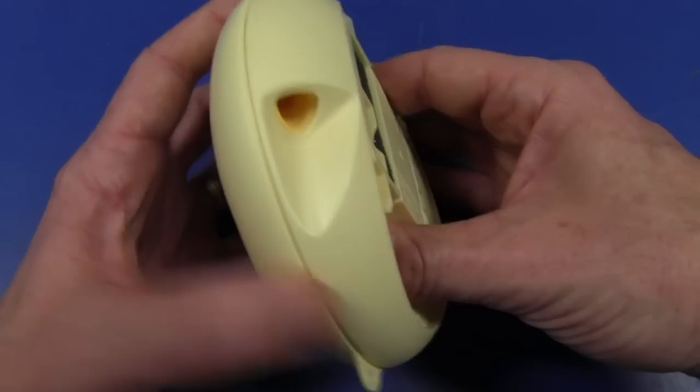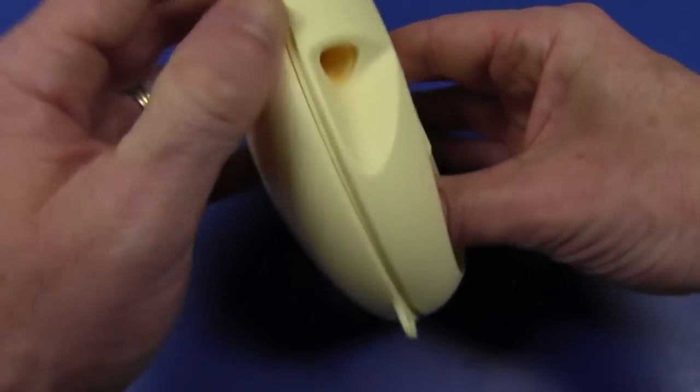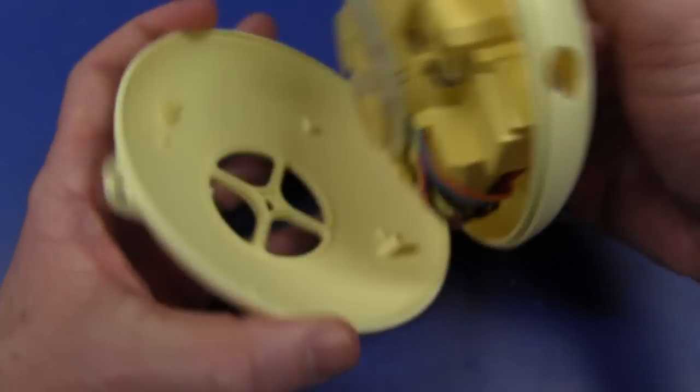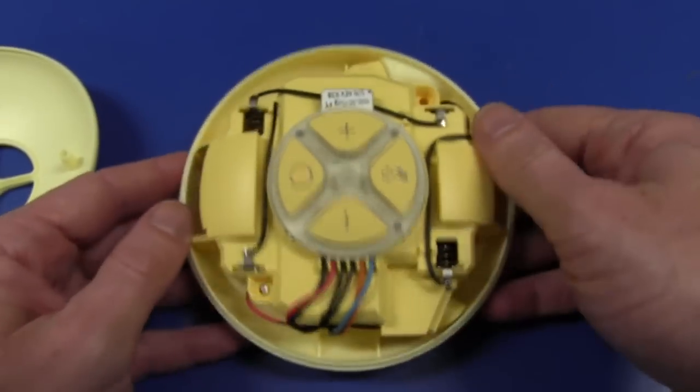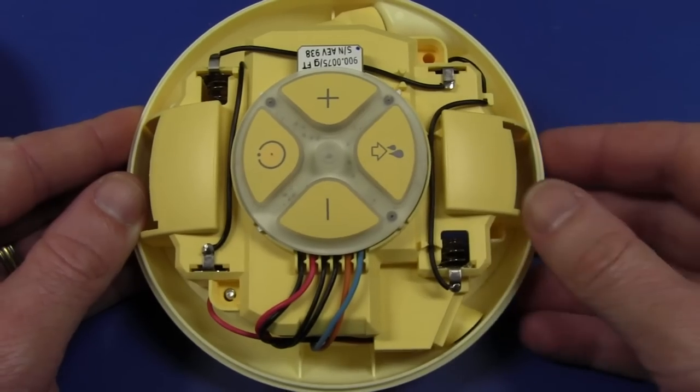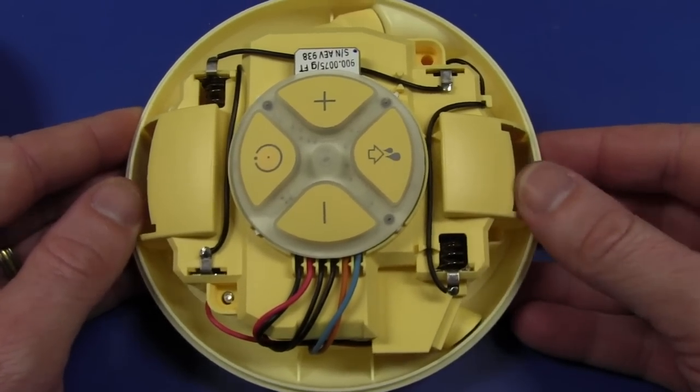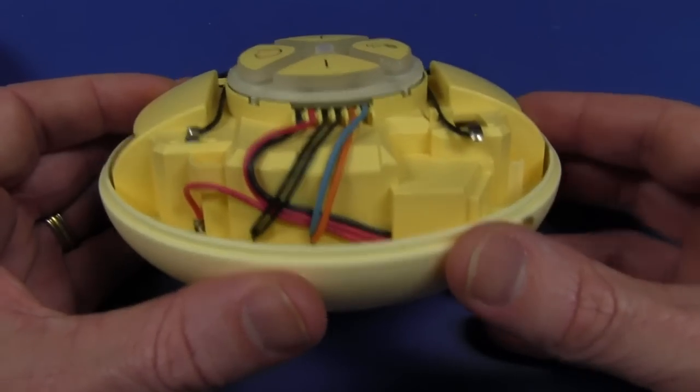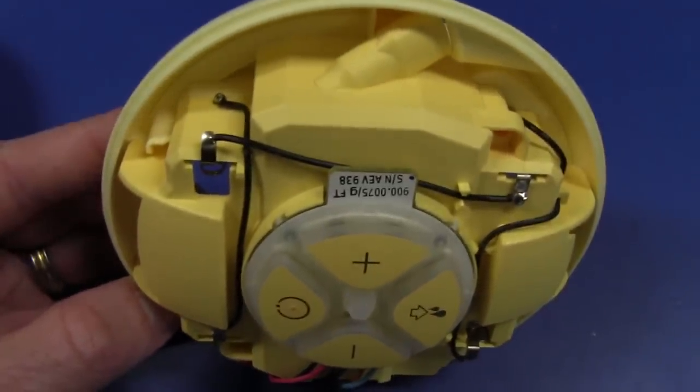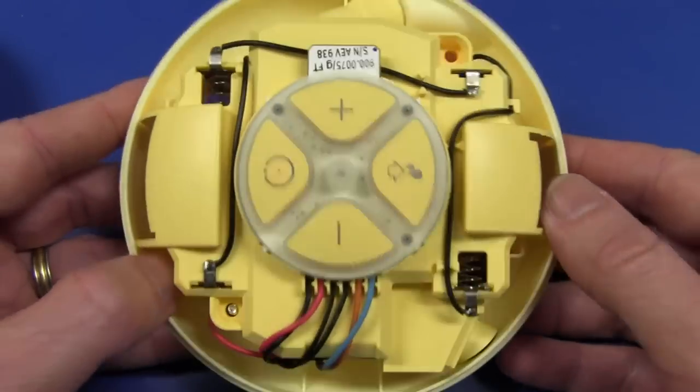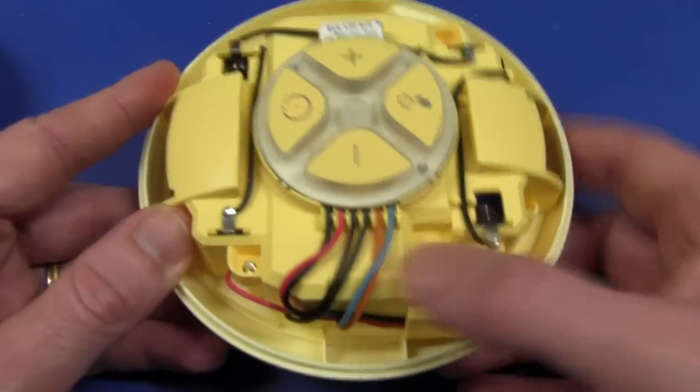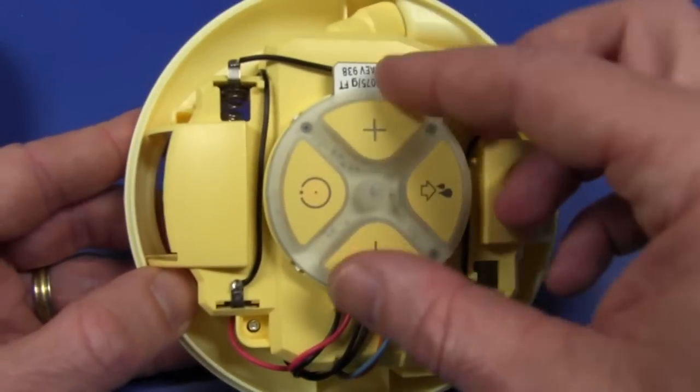That won't be very exciting. I don't really care about that. More interested in the circuitry and why it's failed actually, because it actually does absolutely nothing. The power doesn't turn on. Yes, the batteries are good. So I really want to find out why this thing has failed. And let's have a look at what we've got here. I expect it to somehow separate. Oh, yeah, yeah. Whoa, hey. Yep, no problems whatsoever. Oh, look at that. Isn't that, isn't that neat? I rather like that. Look at the cable management in there. They've really, there's, that's not one, that's not some slapped together, one hung low cheapie, that's for sure.